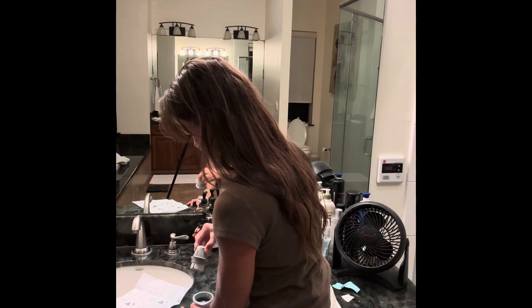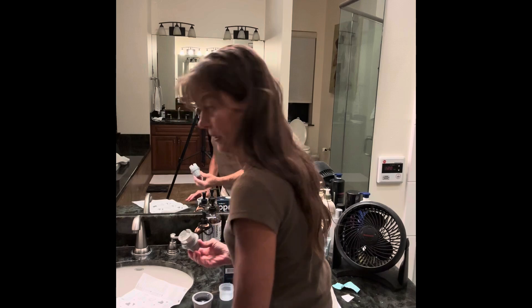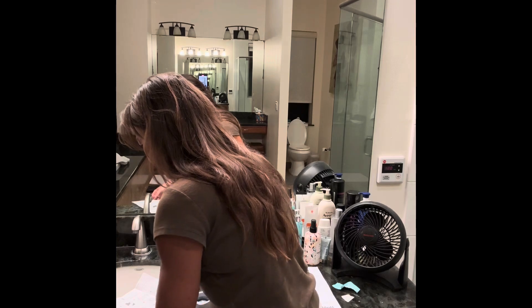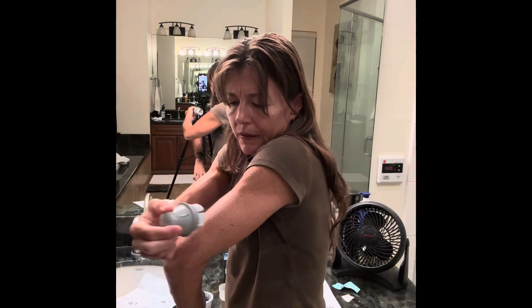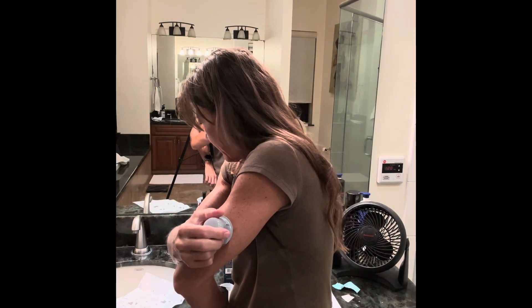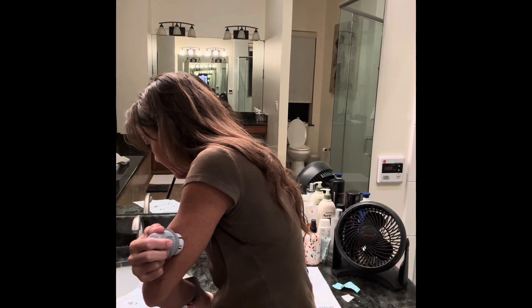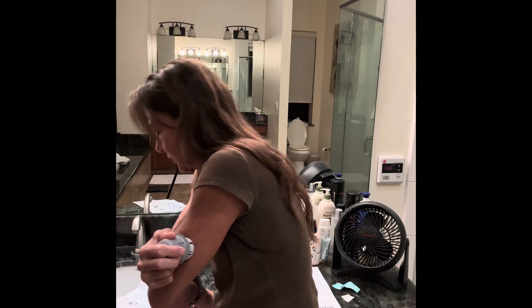Lift it out. I lifted it out and then place it over the site where I want it, and then push down firmly to apply it and then gently pull it off. I did it.